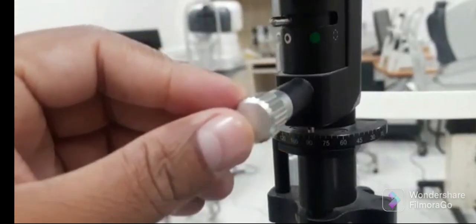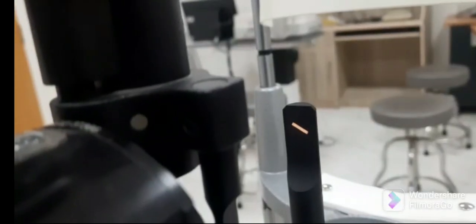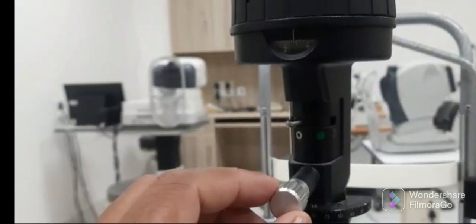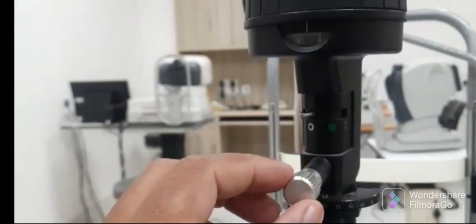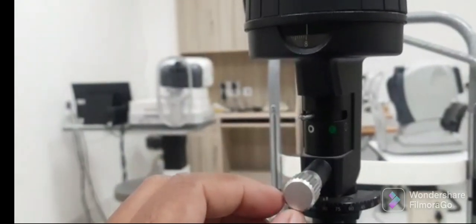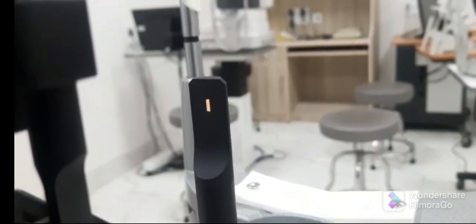The slit lamp should be placed in the vertical position by rotating this knob, as you can see. Now it is vertical. By rotating this knob, the height should be adjusted to the maximum level, that is 8 millimeters, which can be appreciated on this focusing rod as it slowly increases the length of the height.